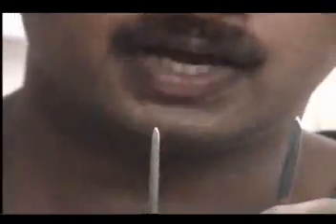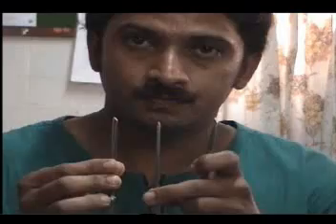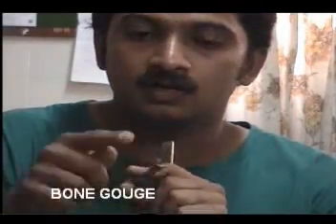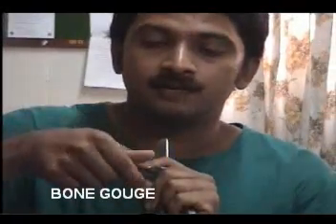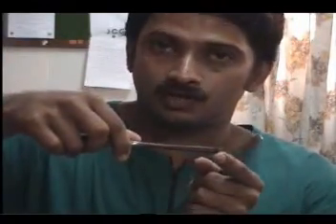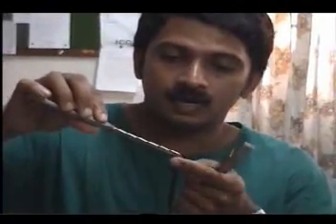An instrument very similar to the chisel and the osteotome, and similar in the way it is used, is the bone gouge. Whereas the chisel and osteotome are used to make straight cuts, the bone gouge can be used to make cuts which are curved. You use it to gouge out bone — it is usually used for taking bone graft from the iliac crest. The bone gouge has a peculiar spoon-like shape which helps to take out bone in that particular shape and size.